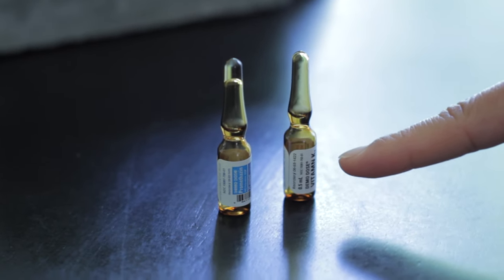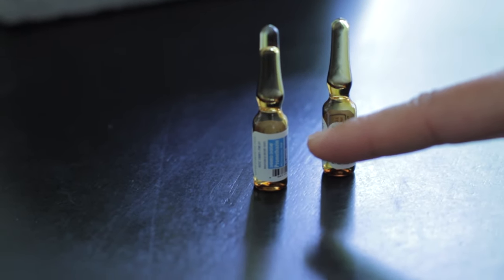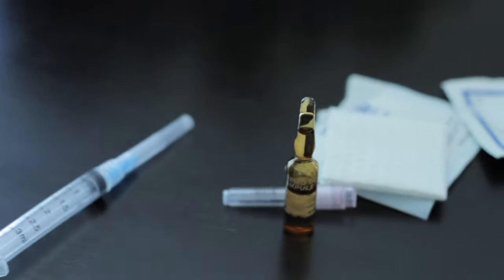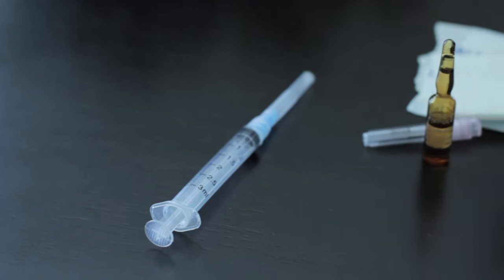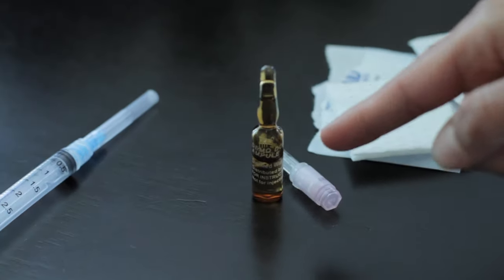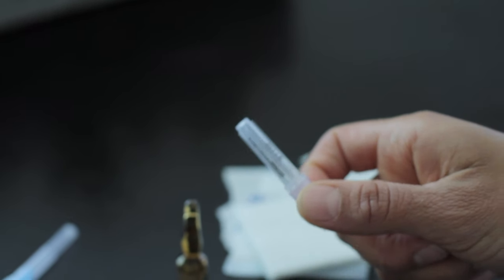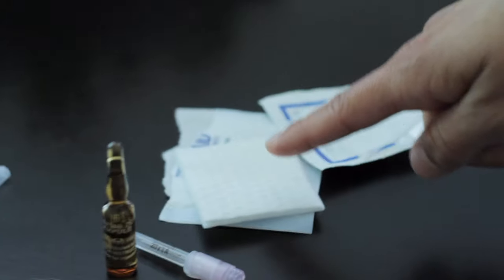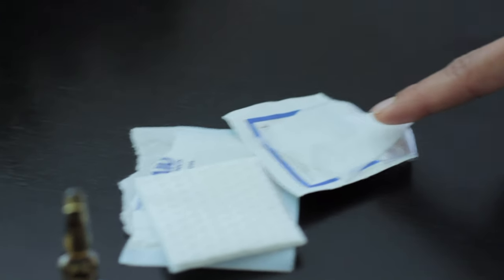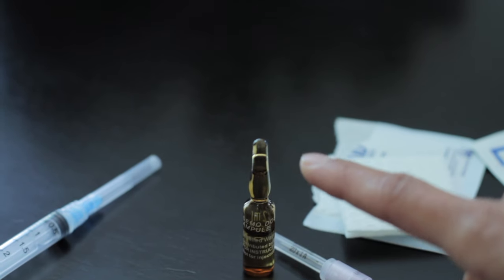Here are two examples of glass ampules and medications that will come in, which is your vitamin K, it helps with blood clotting, and then you have your promethazine which also helps with nausea and vomiting. So here you have your syringe and you also have your medication. You have your filter needles, sometimes it could be filter straw depending on the manufacturer guidelines. You have your two by two gauze, and you have your alcohol prep to clean the neck of the ampule.